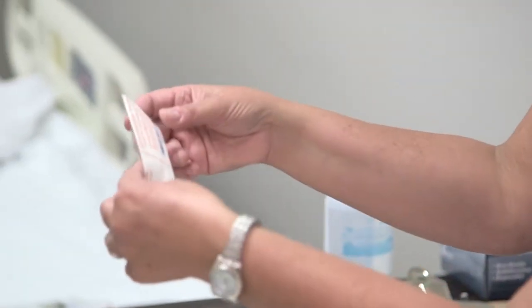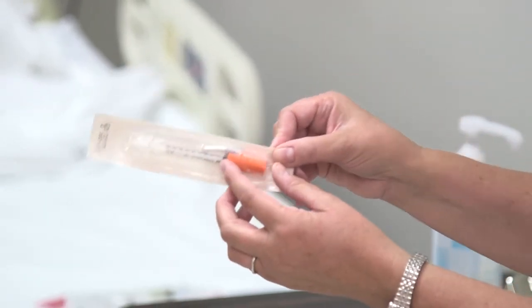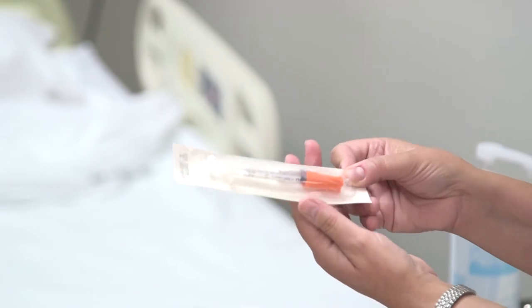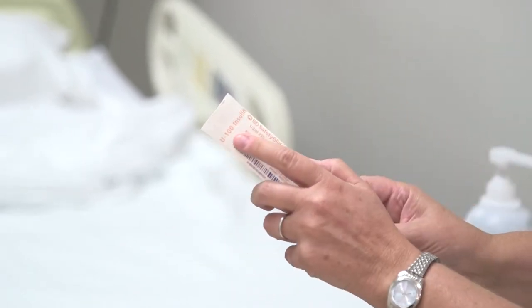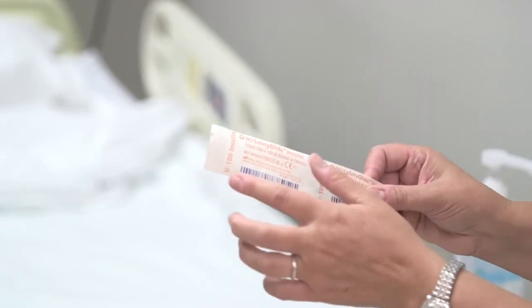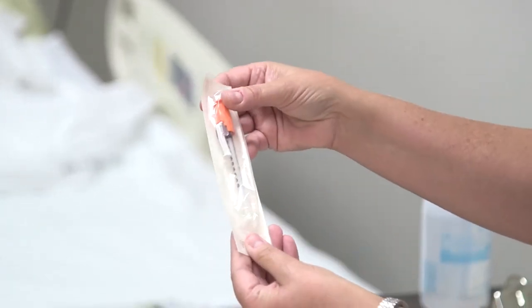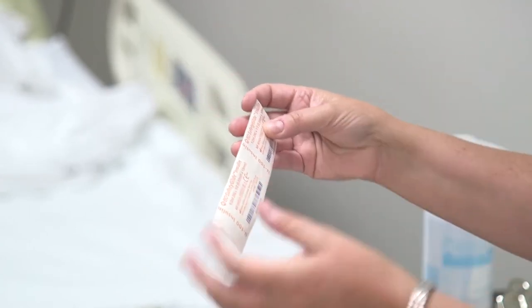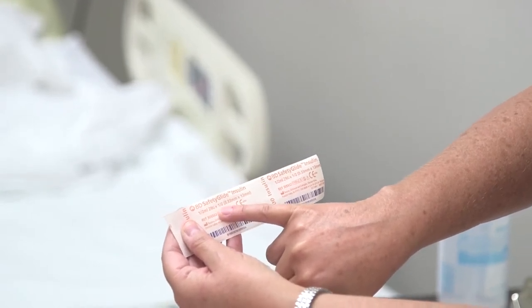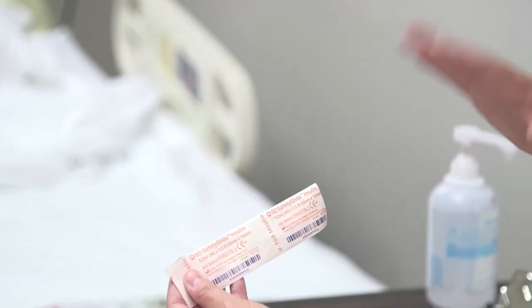You're going to note that I have an insulin syringe. What is important about an insulin syringe? It always has an orange cap, and you don't want to use an insulin syringe for any other medications — it's only used for insulin. You also want to note that it's measured in units, not milliliters or milligrams. It comes in various sizes; this one is a 50-unit syringe, which is a total of half a milliliter. It's 29 gauge, doesn't need to be a large gauge, since it's only going in sub-Q, and it's only half an inch long, which is appropriate.